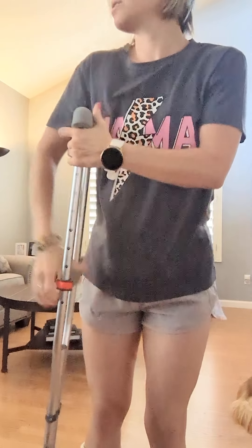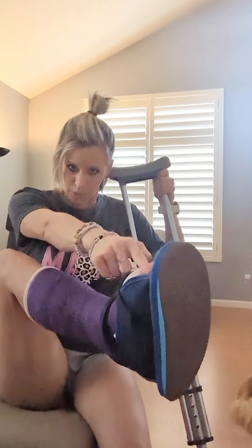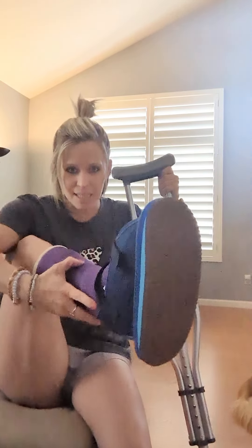This is what it tends to look like if you use it on the same affected side — you limp more, you end up having to lean over it weird. Not only is it going to slow you down, but over time you're going to start to get more pain in your lower back on that side, in the hip, even on the affected extremity. You're probably going to feel more irritation on the lateral outside part of your foot and ankle. Once you're cleared for weight bearing with your boot or a cast with a rocker on the bottom, using the crutch on the opposite side helps you get a more fluid heel-to-toe rock.